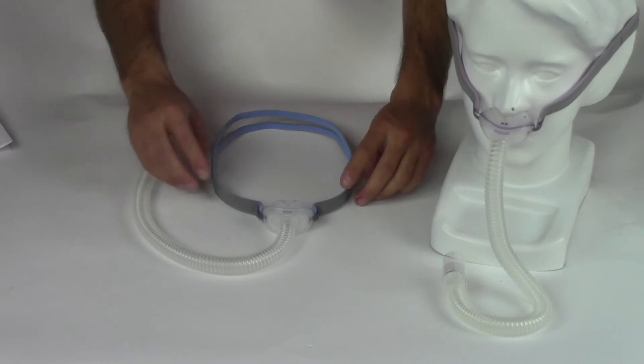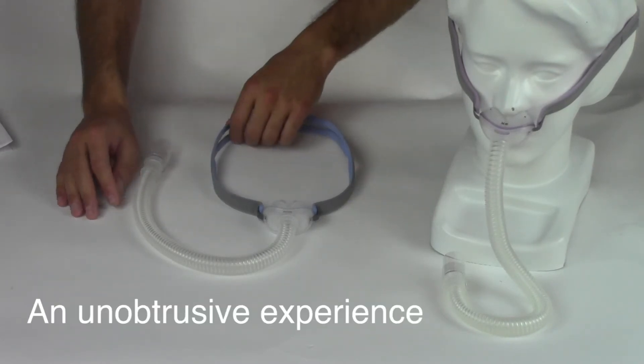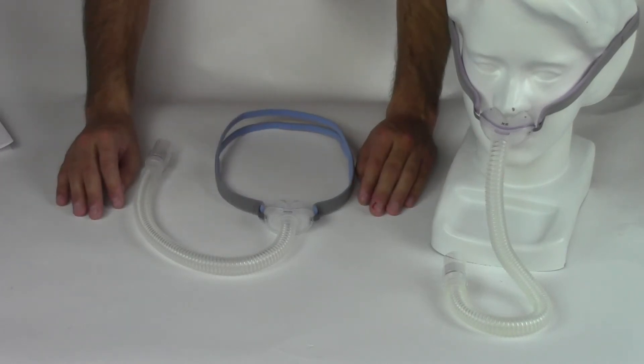This mask is especially ideal for patients who want a small, unobtrusive mask that allows them to toss and turn very easily during sleep.